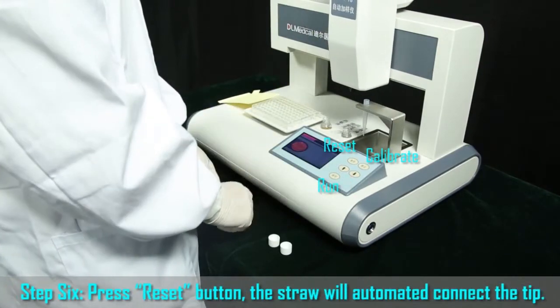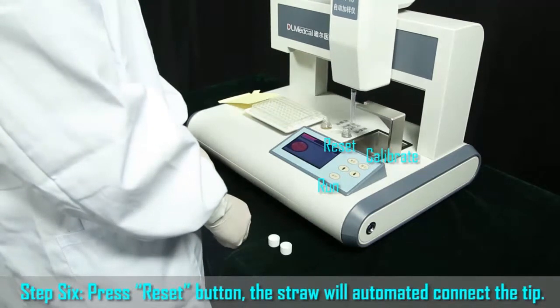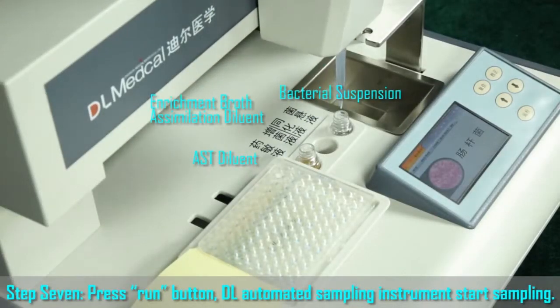Step 6. Press the Reset button. The straw will automatically connect the tip. Step 7. Press the Run button. The DL automated sampling instrument starts sampling.